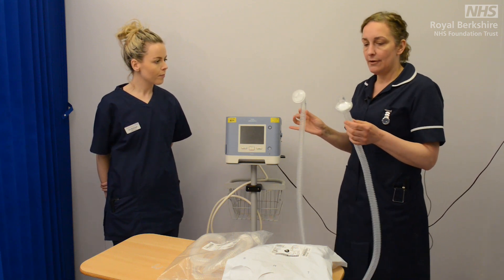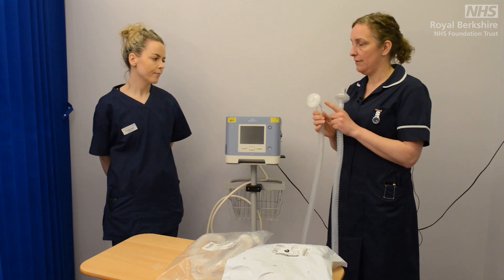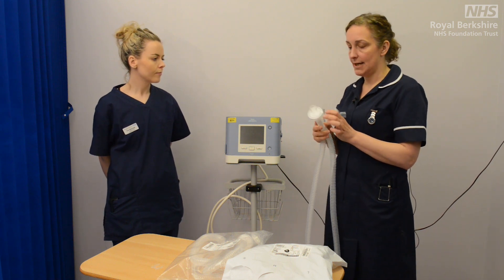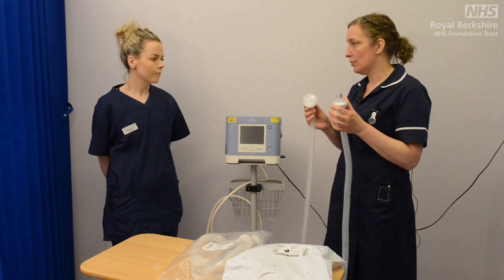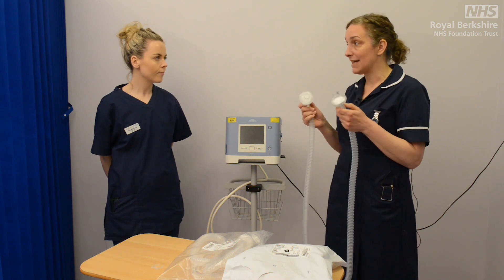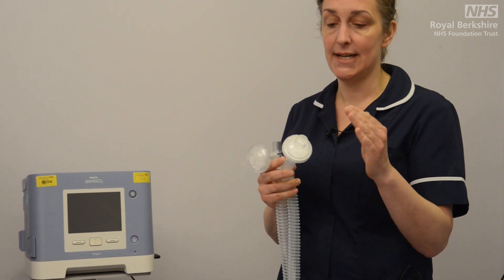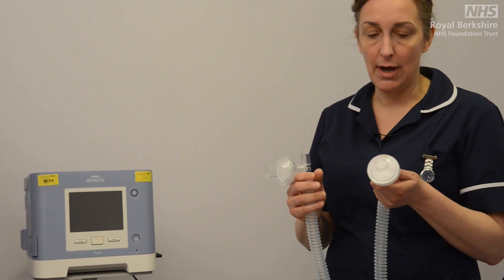You can also see there are a couple of key components here — we have two filters. In patients for ordinary use of non-invasive ventilation, these two filters are just very simple expiratory port filters. They do not work as bacterial filters for potentially COVID positive patients, so we may need to add in an additional antibacterial filter, which will be available in your areas.